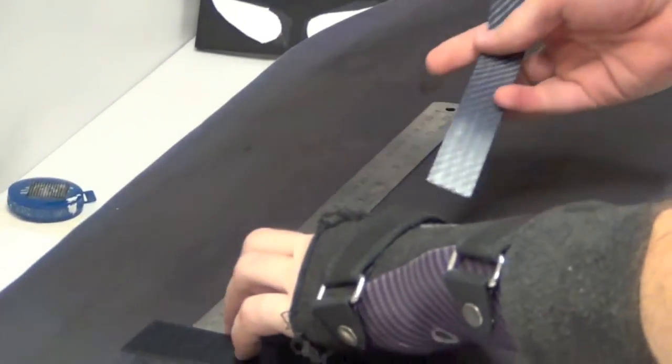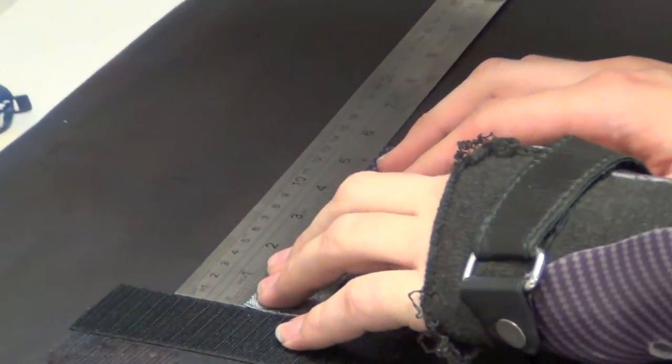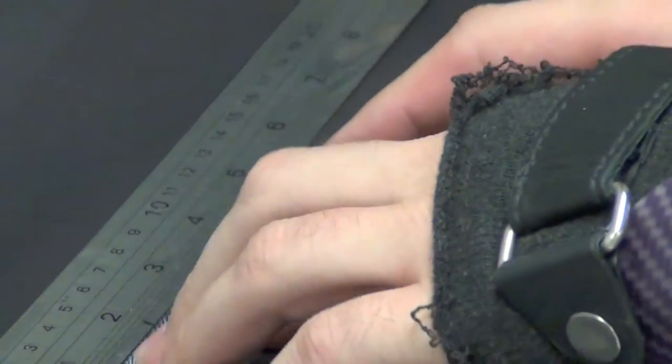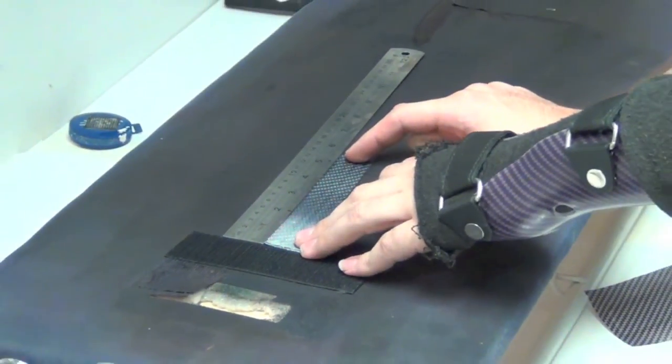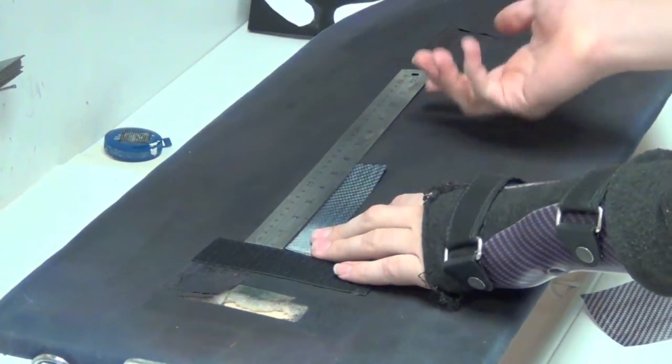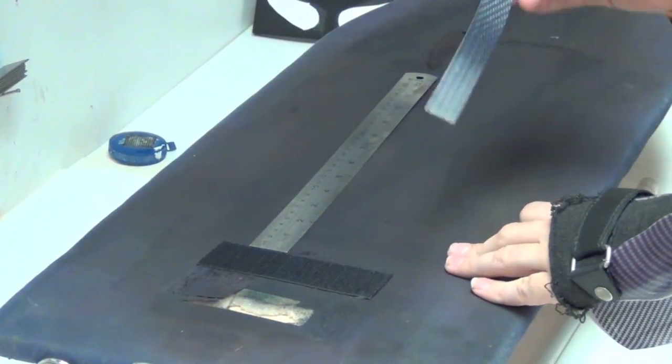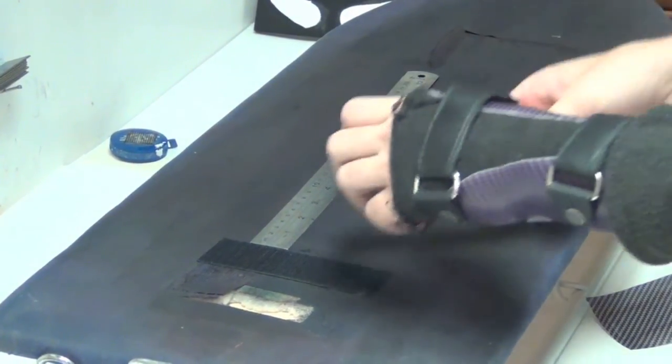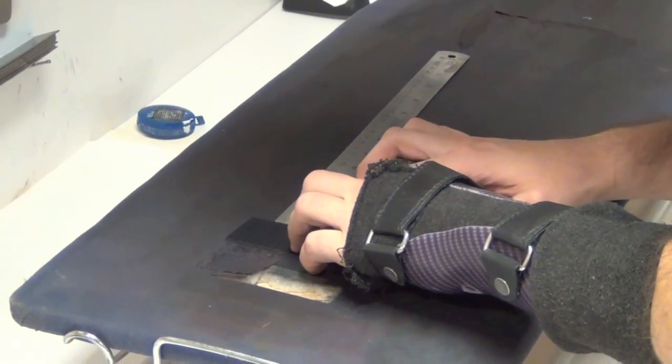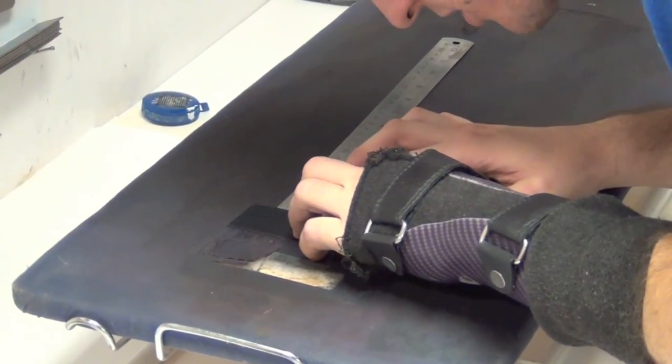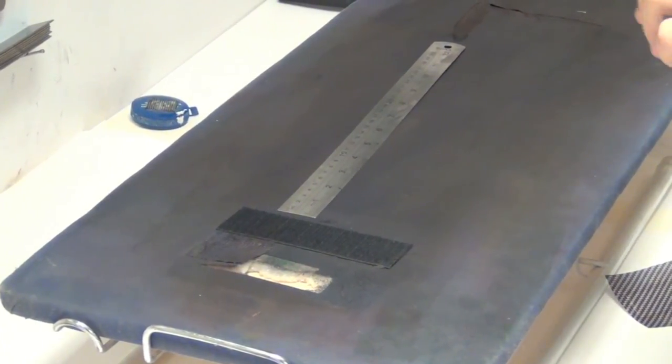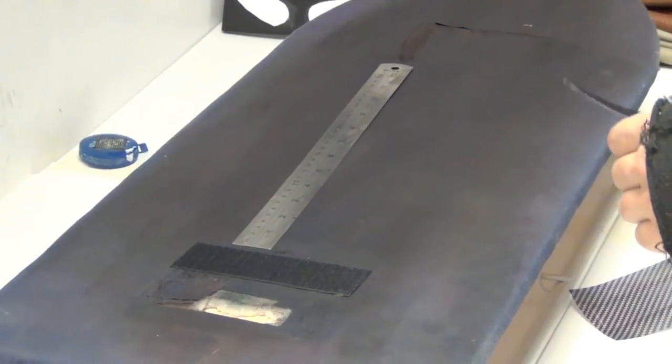Now, let's check our length. We started at 6 3/8, and now we're at 5 5/8. So, we've lost a good 3/4, almost, of an inch off of that. So, again, Dacron shrinks a lot more than your Velcro does. Cut your Dacron straps extra long. And we've also lost some width. This started out at 1 inch, and now we are at 3/4. So, remember that when you're cutting your straps, is that they're going to shrink length and width wise.